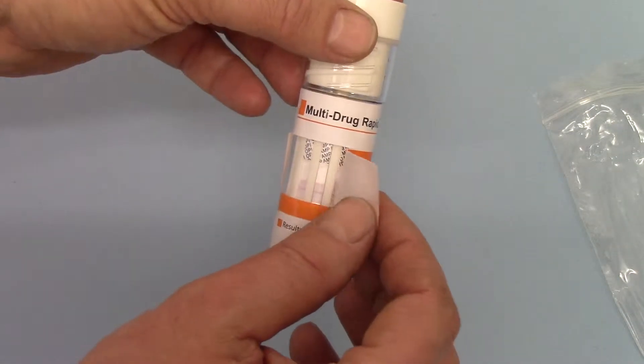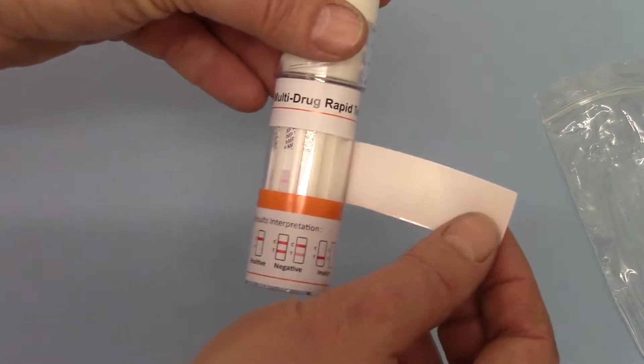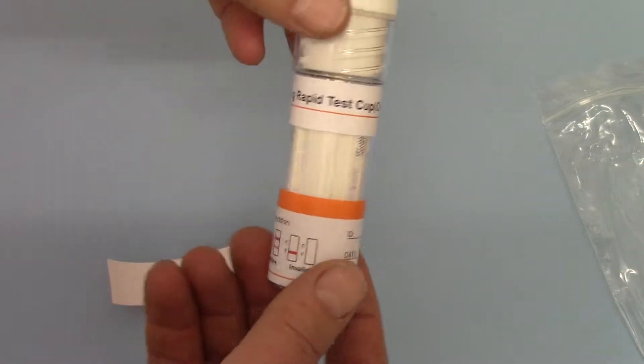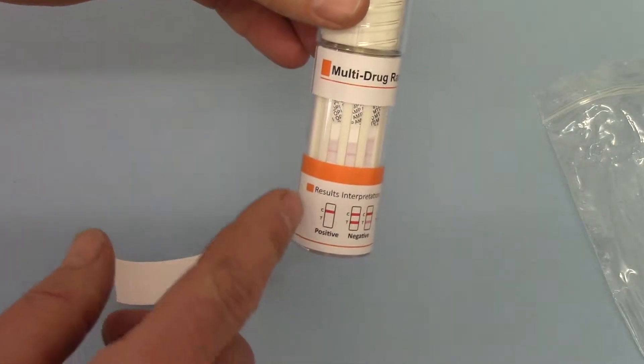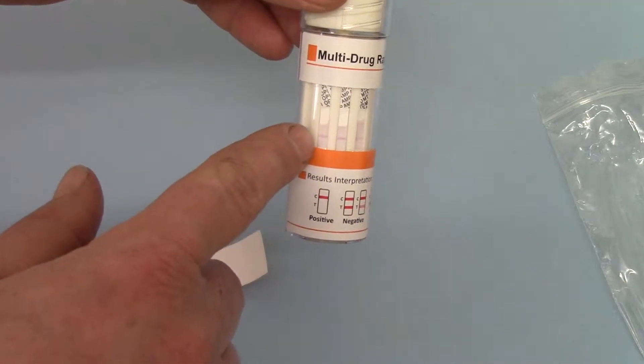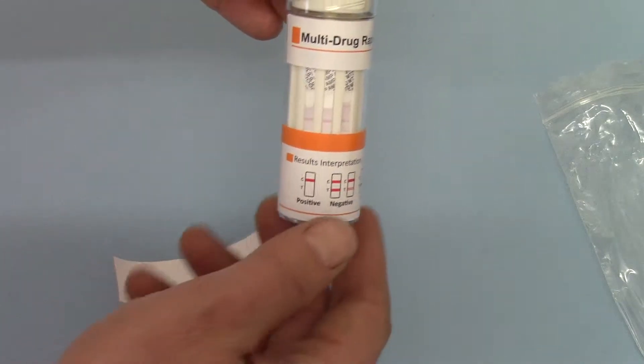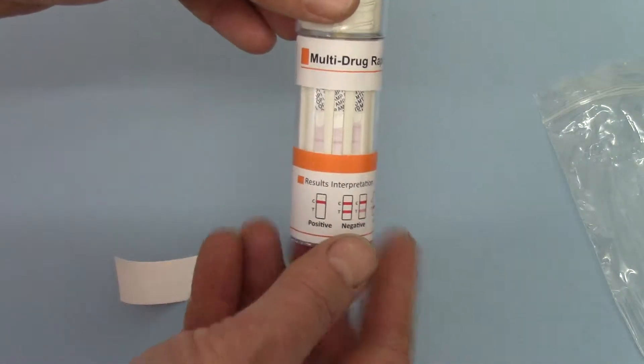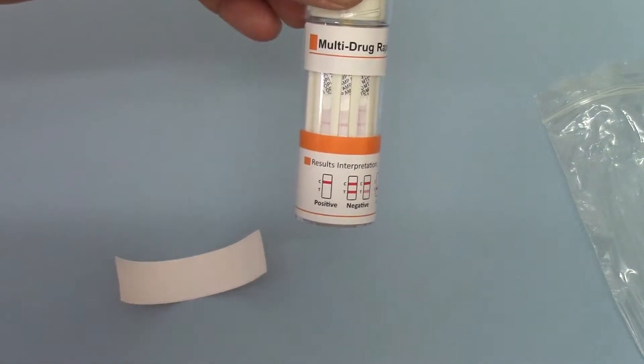This hasn't had the full five minutes, but I'm going to peel this back so we can demonstrate the actual membranes running. You'll see here the pink dye and the discoloration occurring as the saliva travels up osmotically these membranes. They're individually labeled with the drug coding.